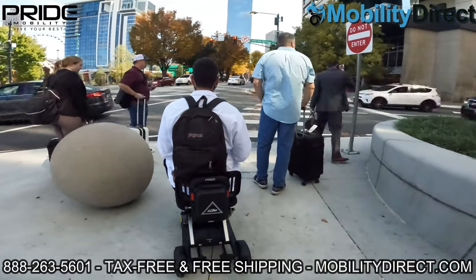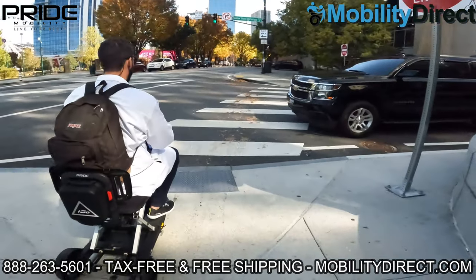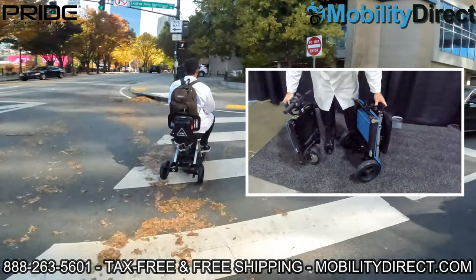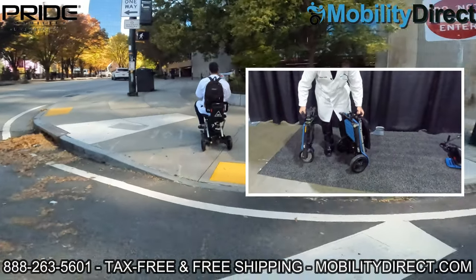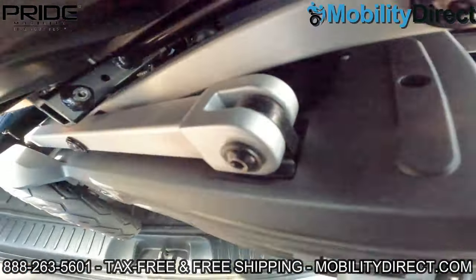In this video we have the brand new iGo by Pride Mobility. It's a folding hybrid travel-friendly mobility scooter, meaning that it can fold and it comes apart. The heaviest piece weighs just about 32 pounds and it can disassemble into three pieces. It's super easy to travel with and we couldn't be more excited to show you what it's like to take an airplane while using a mobility scooter.